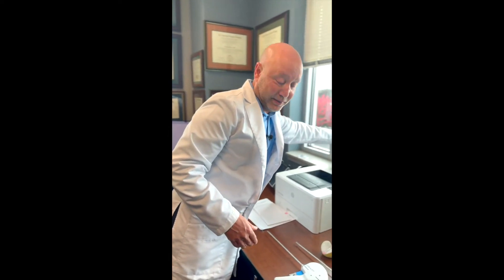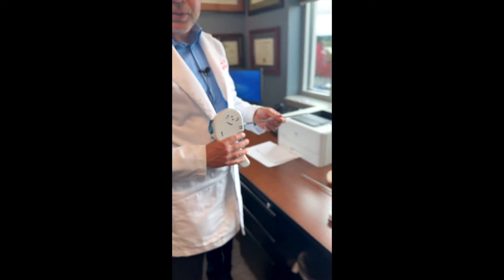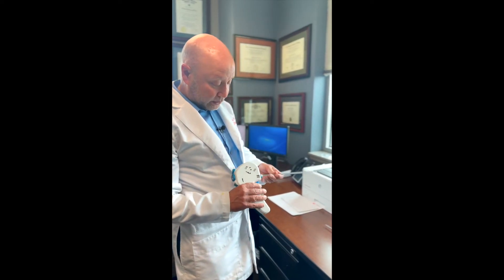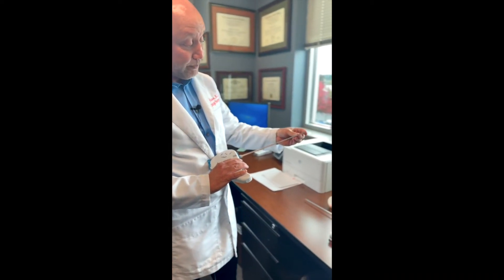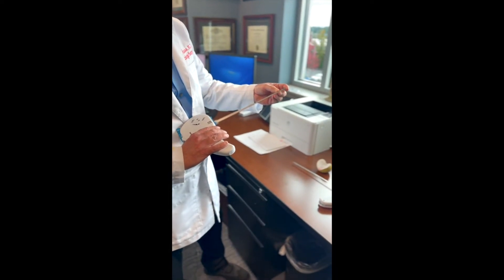So let's take a look at this so-called high-tech device. This is the handpiece that was used up until very recently — the one responsible for close to 400,000 procedures worldwide, at least that's what the company touts. If we take a close look at it, we have triggers that we use to get the tip into position and to deploy the Urolift clip itself.